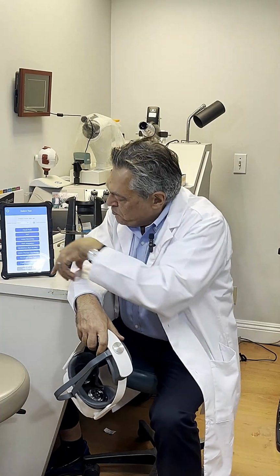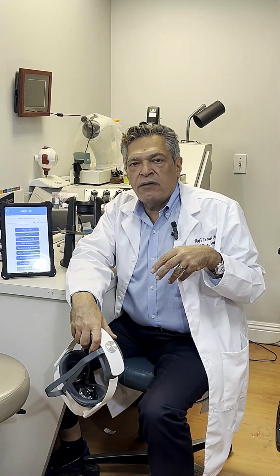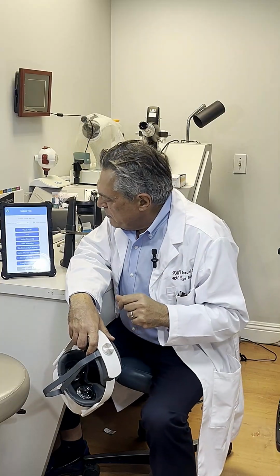There's a strabismus measurement that measures the eye motility and the alignment of the eye in both distance and close up. There is a vision therapy monitoring, which shows how patients are using both eyes to do their work, such as reading a paragraph or following a circle or a square.